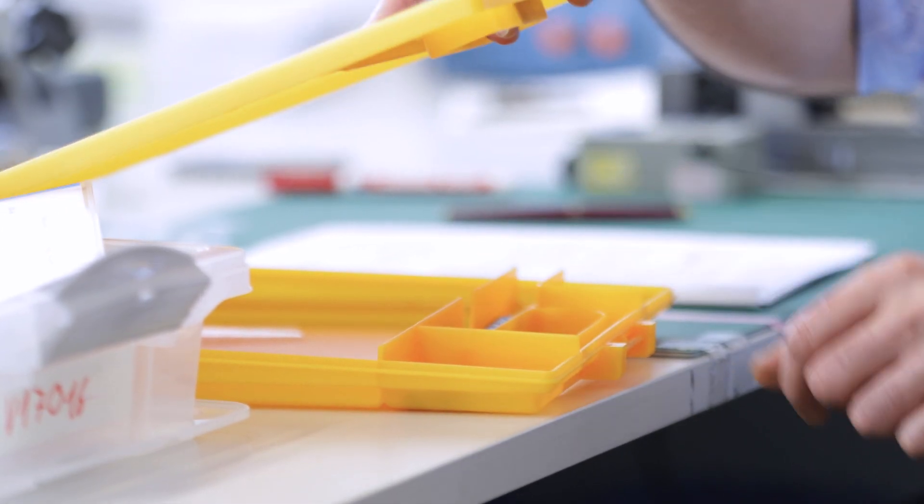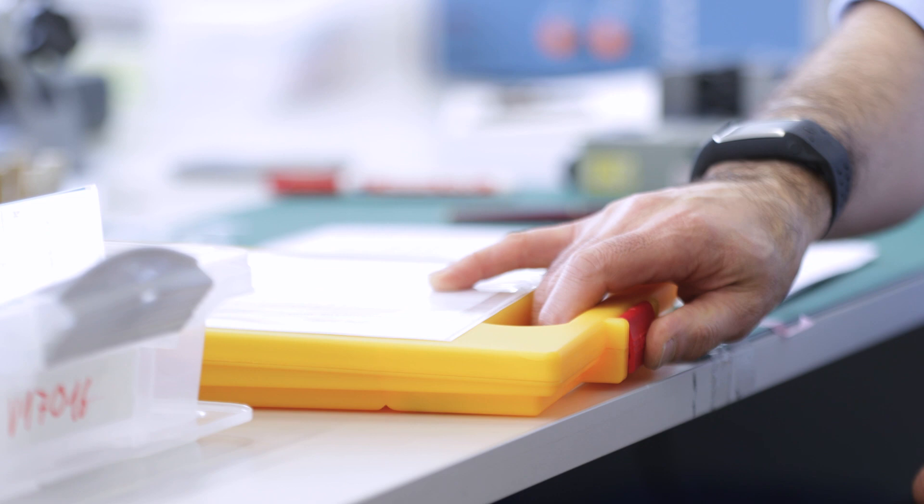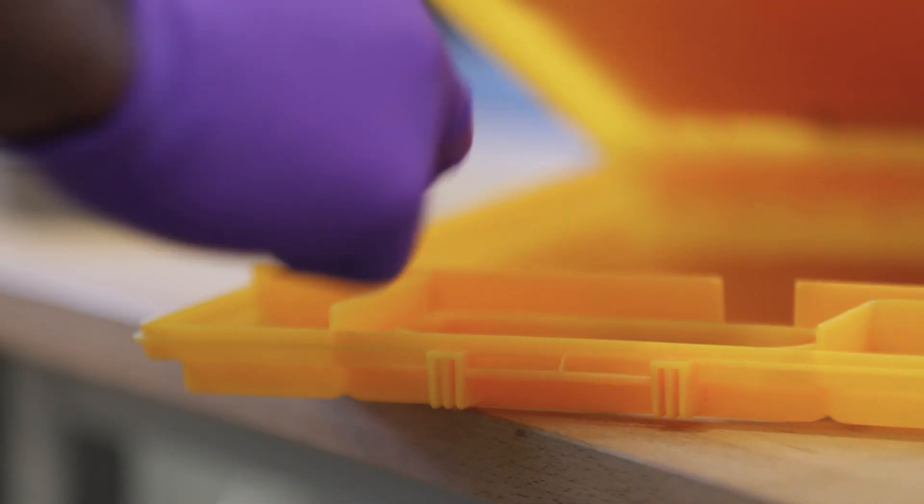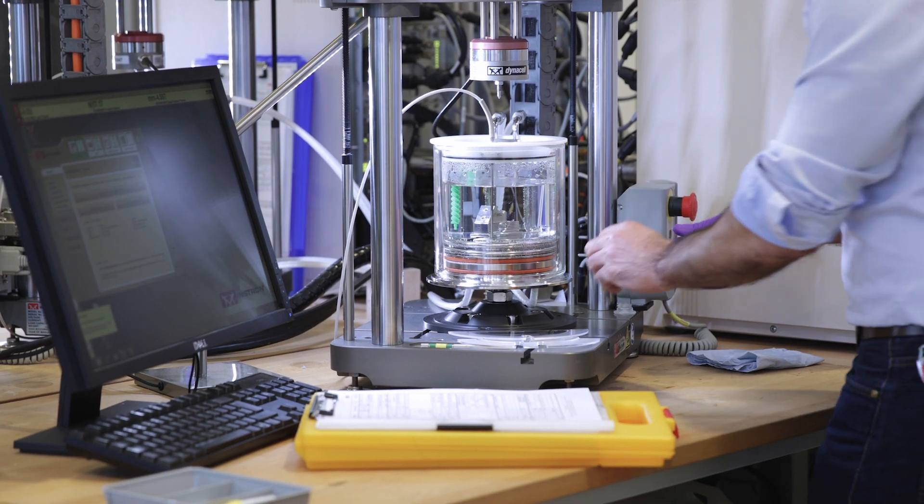The specimens are placed in the holding device representing the load situation according to ISO 14801 standard. The test is performed according to the test protocol.